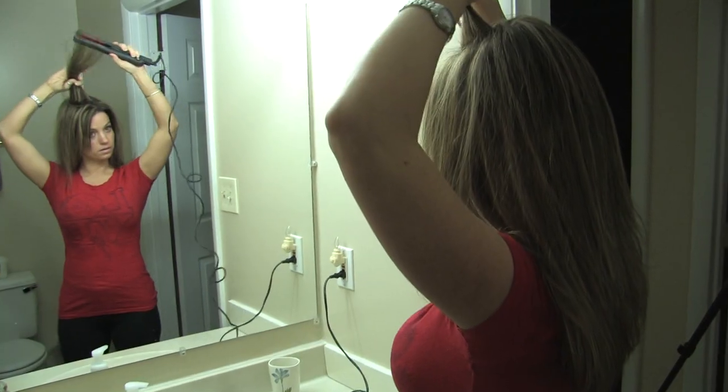I'm more comfortable at work, I'm back in the gym, I'm playing with my son, enjoying all the activities I love. I'm so glad that someone suggested that I get a Dynasplint — it has made a huge difference for me.